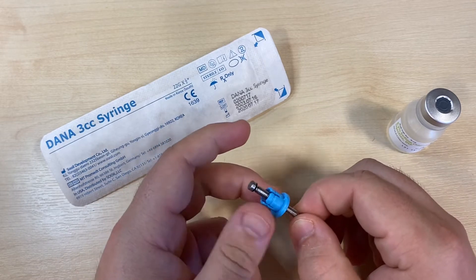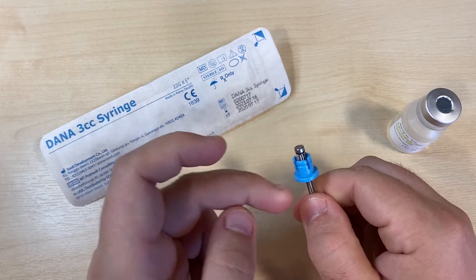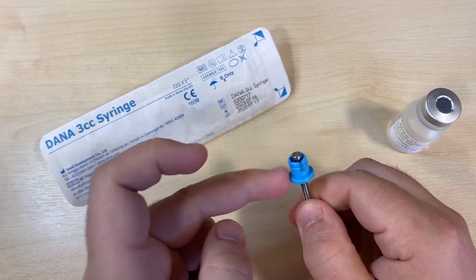Make sure your linking screw is moving up and down the thread smoothly before setting it to the top. The blue top hat should be flush with the head of the linking screw.